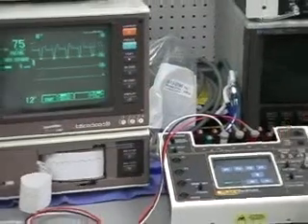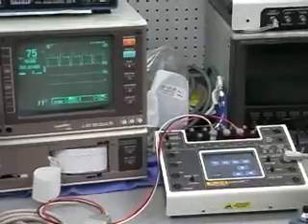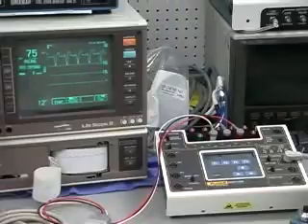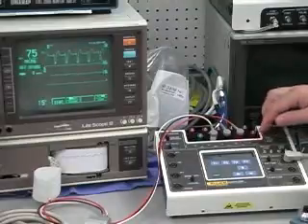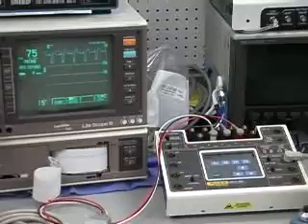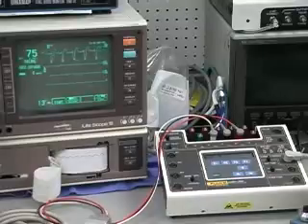And this is a unique feature of MPS 450 and medsim. You can actually look at that pacing window on the system. And this does cover the full range as specified by the standard, and that's plus or minus up to 700 millivolts. So it's a very large amplitude spike. And that is something that is typical when you are pacing with the internal, a transvenous type pacemaker.